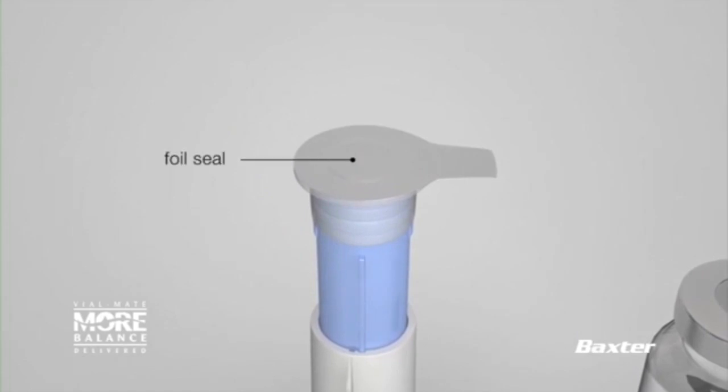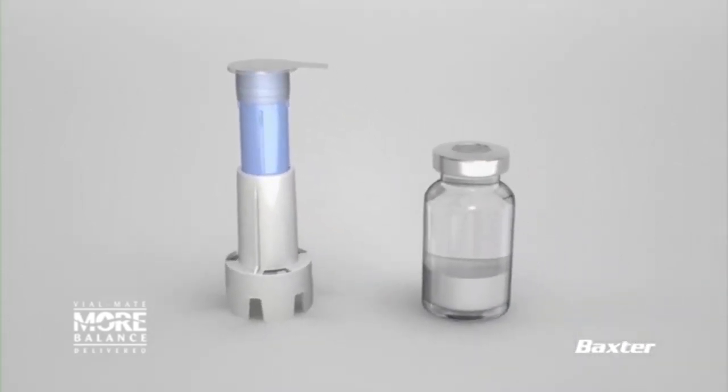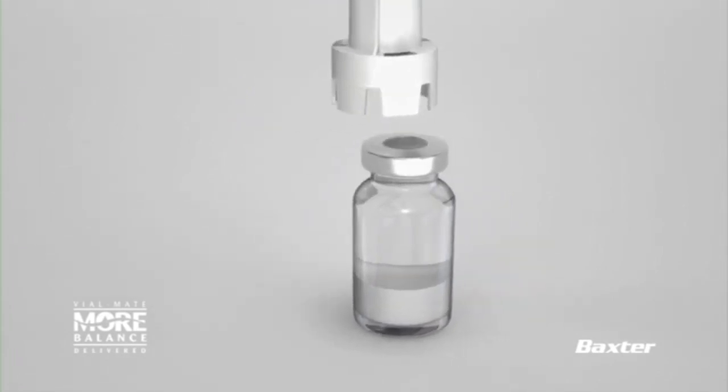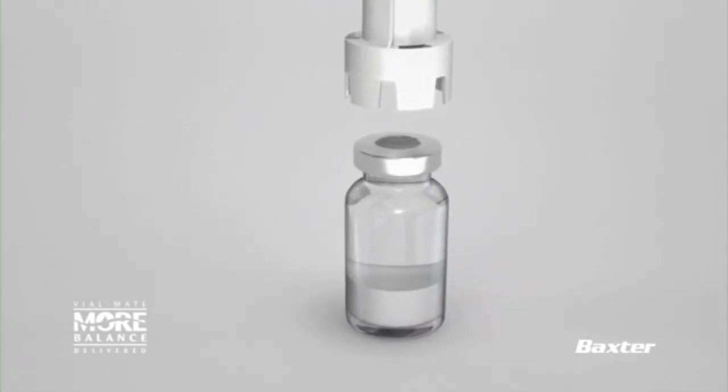So, here's how they work. The key here is to remember that this medication is assembled by nursing at bedside. This way, there's no wait for pharmacy to bring you your meds and as long as you hang it within an hour, there's no waste in the medication due to it expiring.